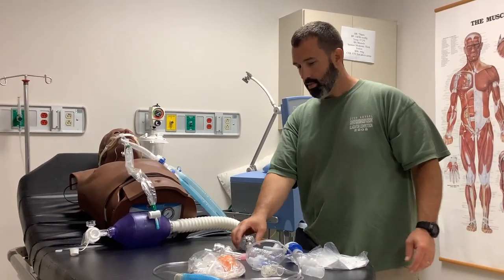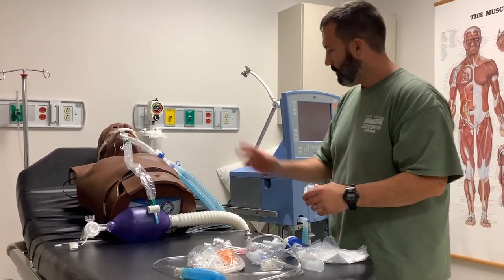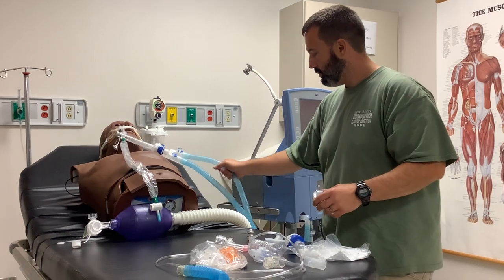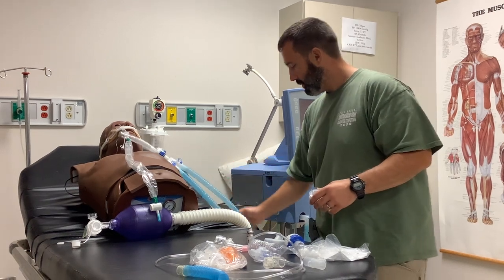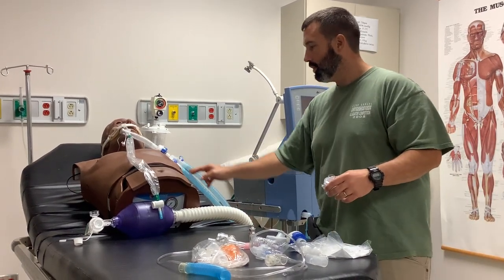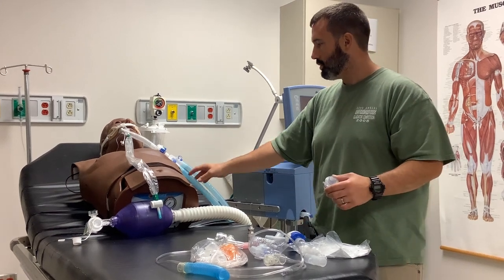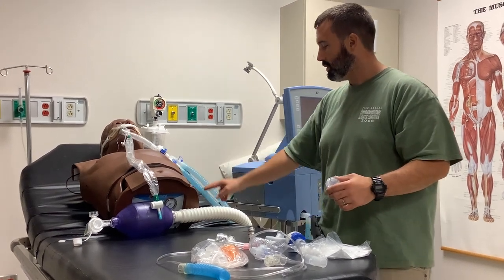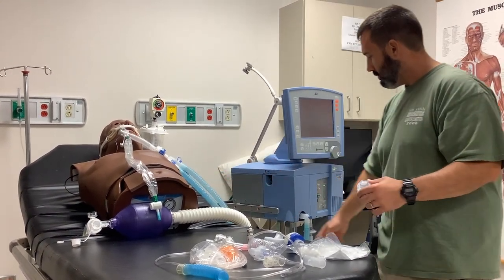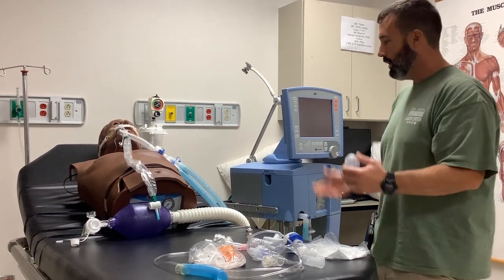When putting in an MDI or small volume neb, make sure that you identify your inspiratory limb of the circuit. Looking at this circuit, I would think this is the inspiratory limb, but if I trace that back, it goes to the expiratory side of this machine.